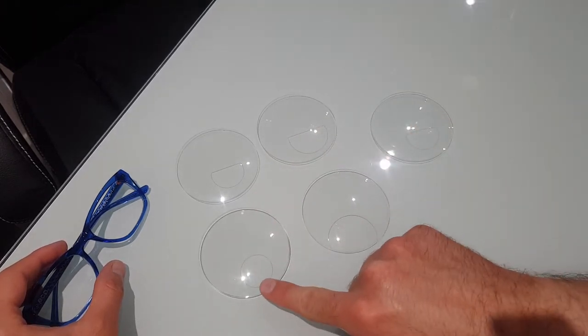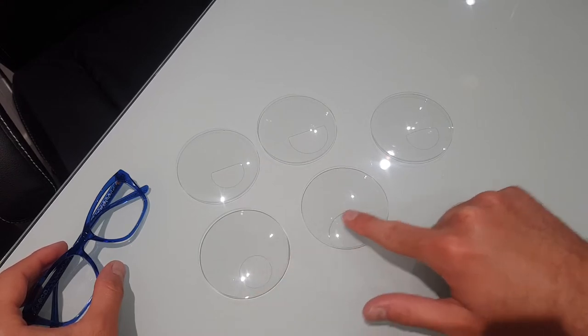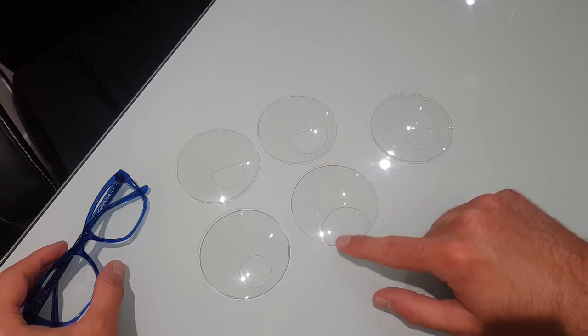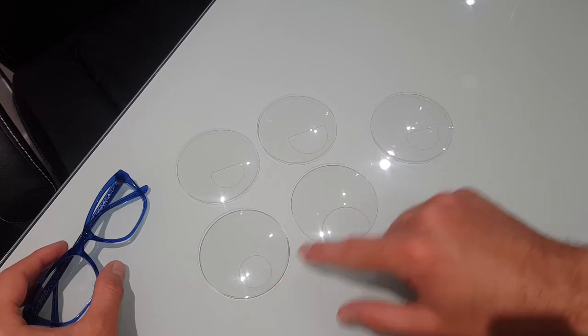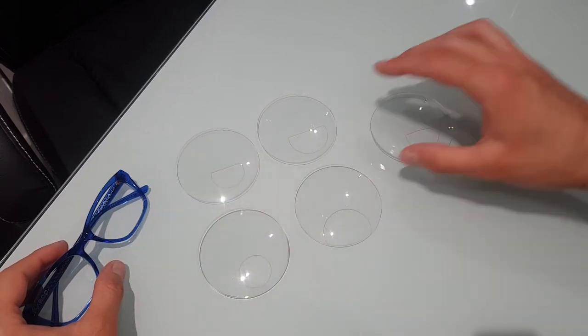The round segs, this is a round 24, so it's quite a small segment. And this is a round 38. The round 38s are quite a bit larger than the round 24, and you'll see the differences in a minute when I show you on the frame how that's represented.